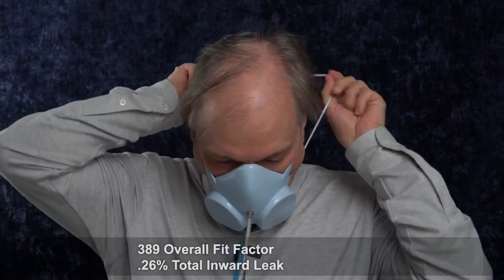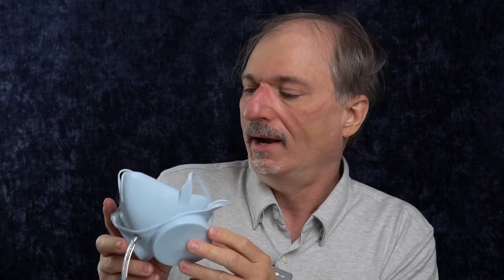This mask works really well for what it's intended to do. I have to say I'm impressed, and it's really breathable. This mask worked so well, even though it's really breathable. The N95 filter is outstanding for an N95. I didn't even have to break out the N95 cheater test that's used with PortaCount to help pass N95s.